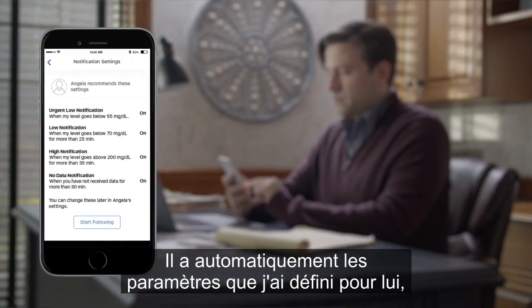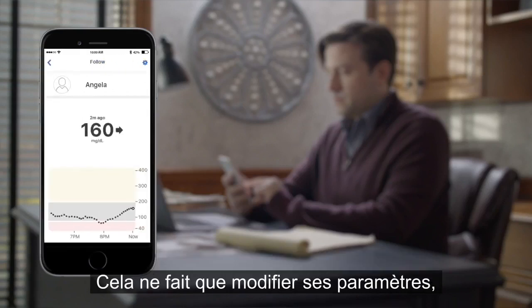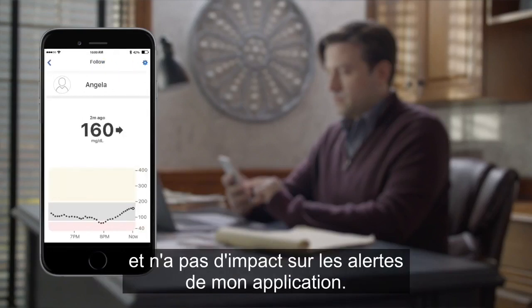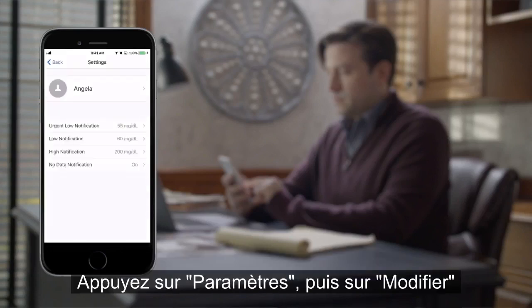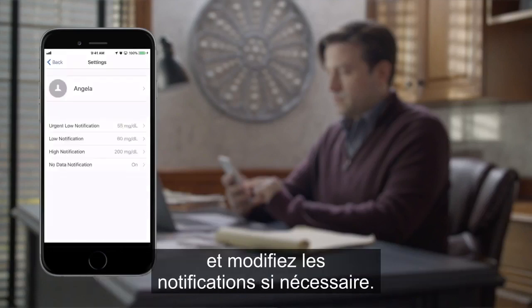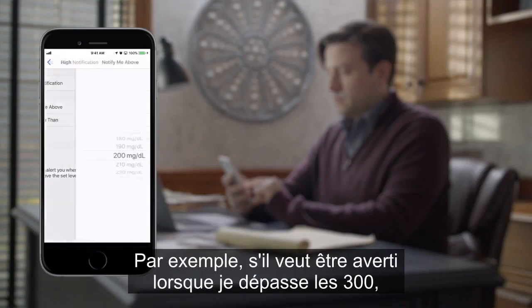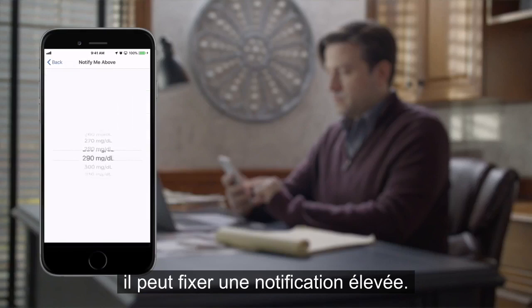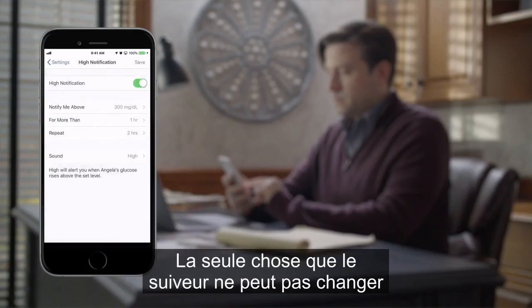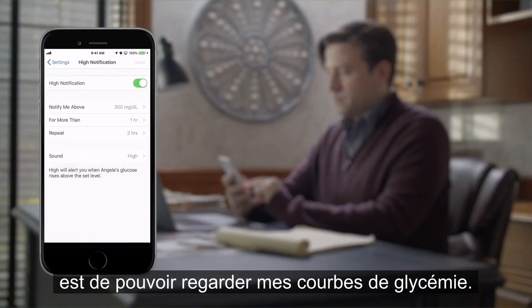He automatically gets the settings I set for him, but he can go into settings and change them at any time. This only changes his settings — it does not impact the alerts I get on my app. Tap Settings, then tap Edit and change notifications as needed. For example, if he wants to be notified when I'm over 300, he can set a high notification.